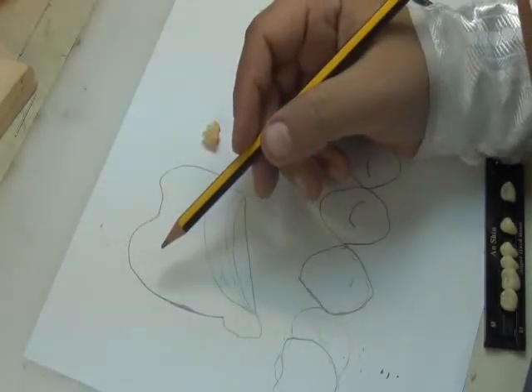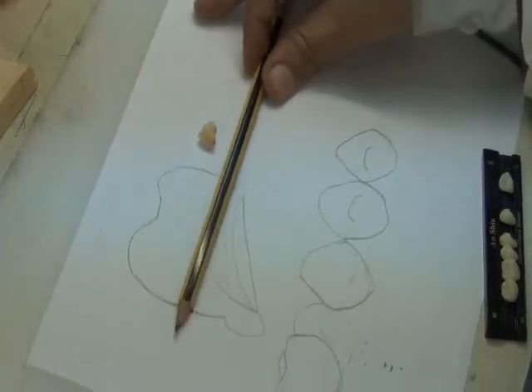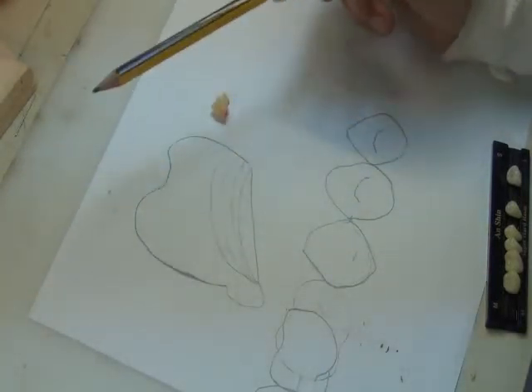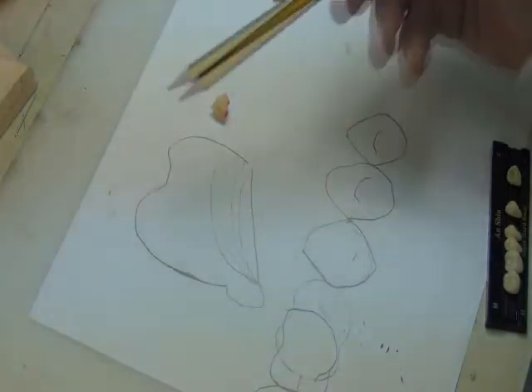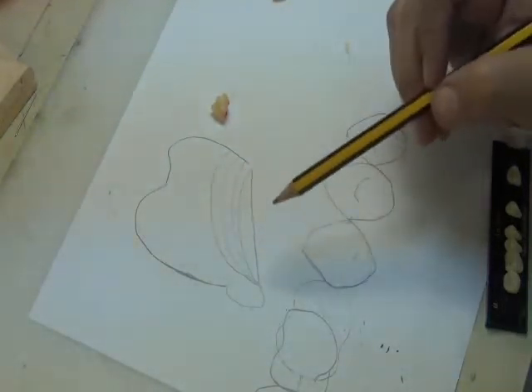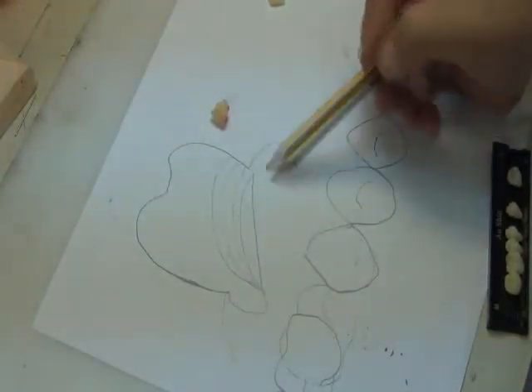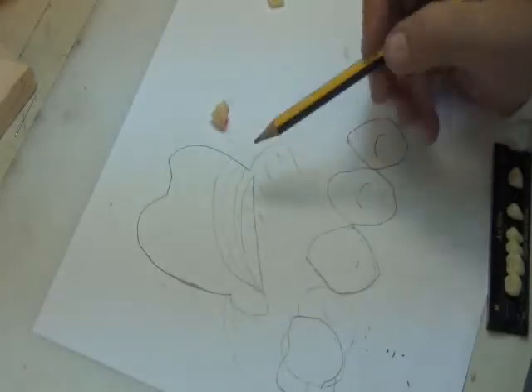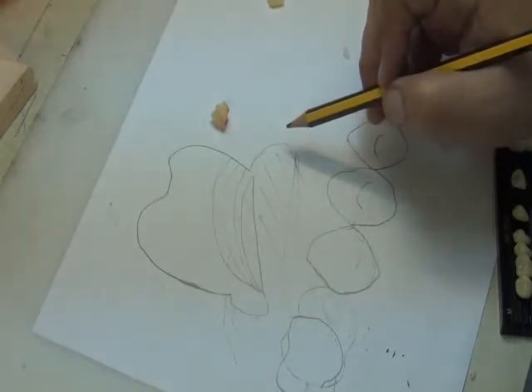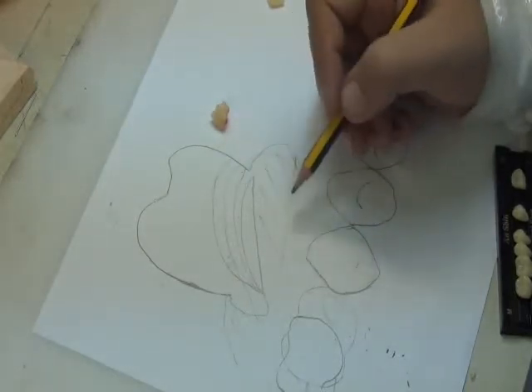And this happened with you in the dentures. If you remember, some of you came and trimmed the tooth like this, horizontally. What happens if you trim the tooth horizontally? The tooth is no longer aesthetic from the buccal side, and this is appearing to the patient. Okay? So no matter how much we trim, we begin from the fitting surface. And even before that, even before trimming from the fitting surface, we go and remove wax. Remember that the tooth is embedded in wax. So we begin by removing wax, number one. We trim slightly from the acrylic base if we have an acrylic base. Okay? And then we trim from the tooth as a last resort if the tooth is still high. So this is the sequence we follow.